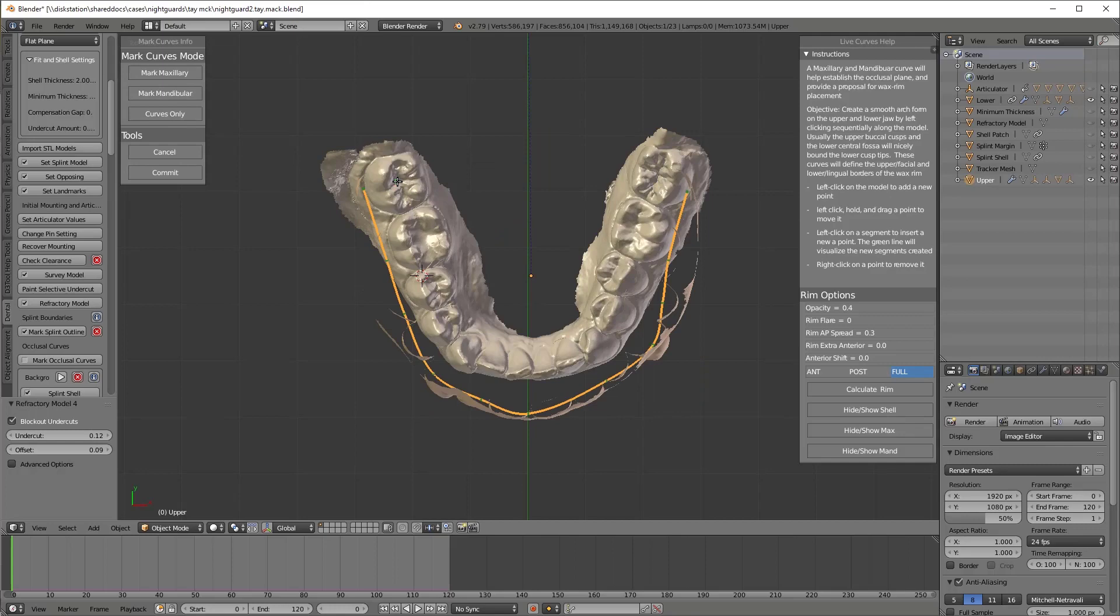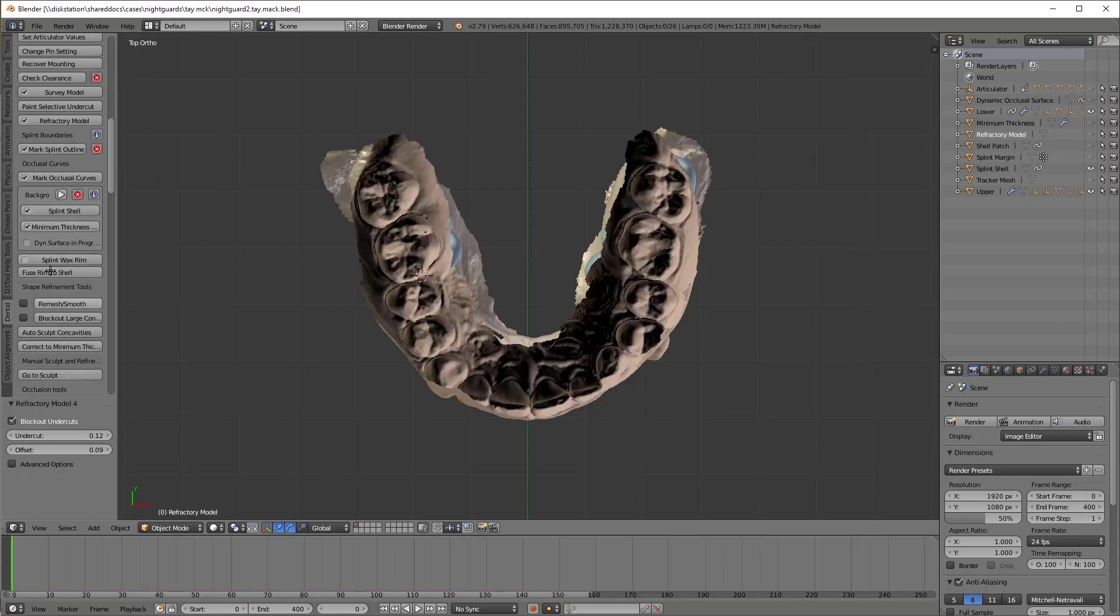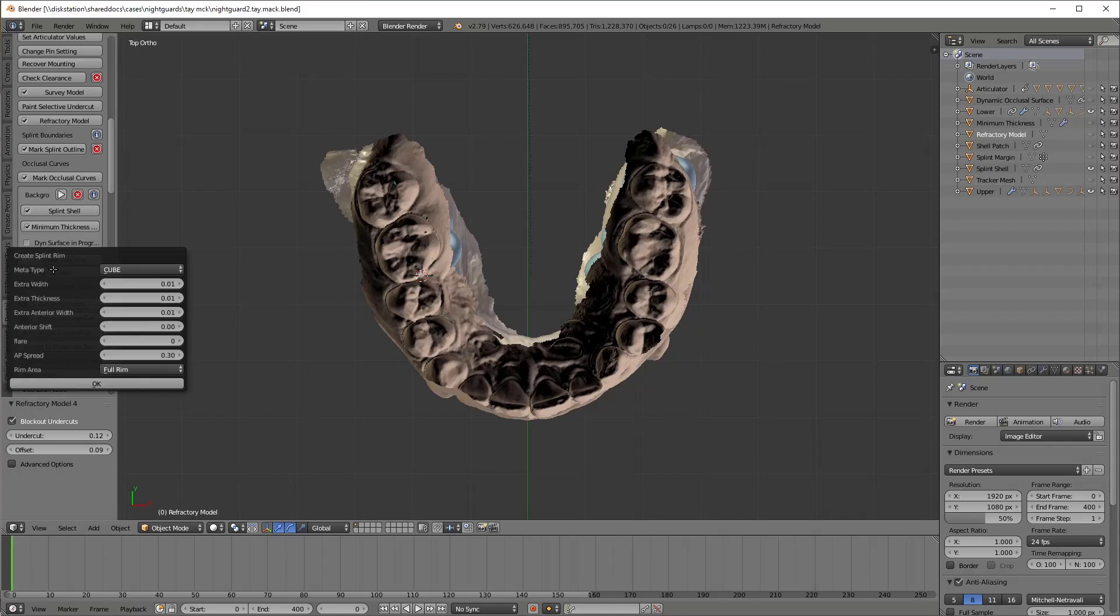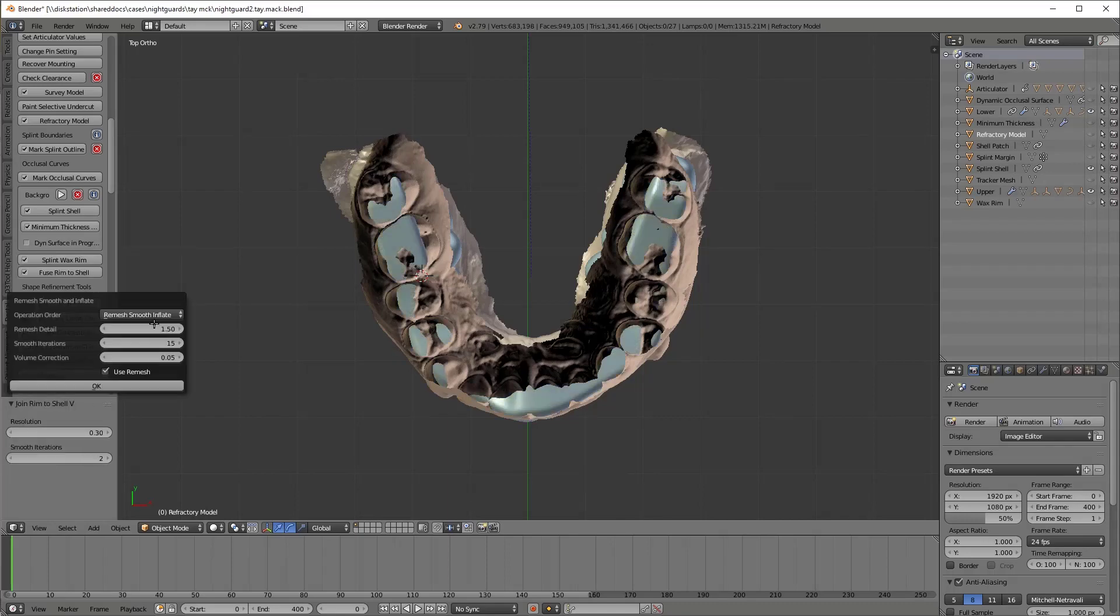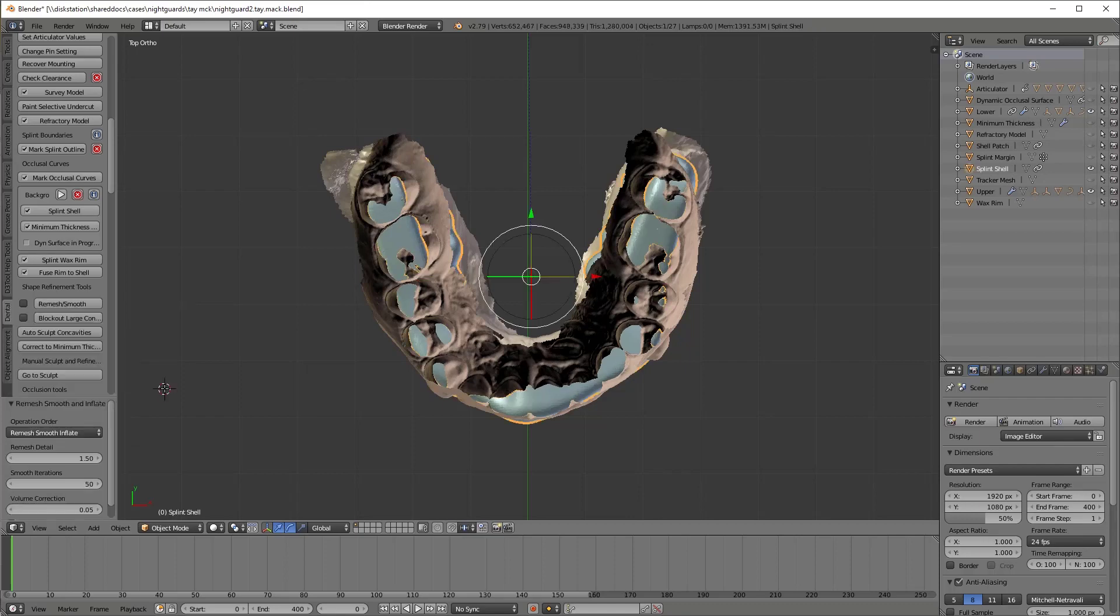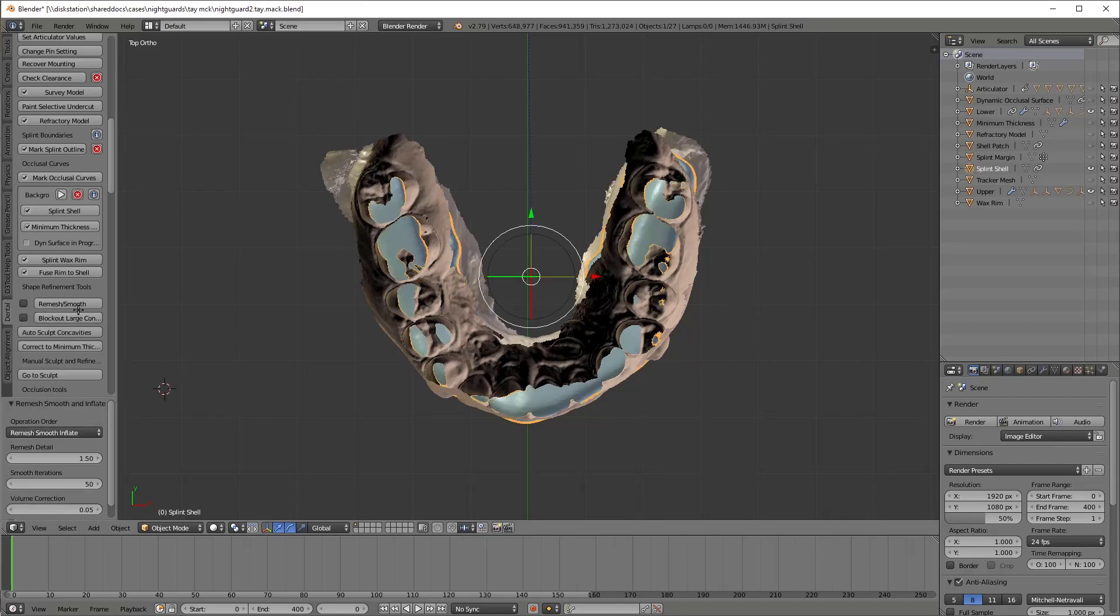Now we're defining the medial boundary of the flat plane with the mandibular curve. And so I'm going to click through the occlusal grooves. Basically we're trying to keep the working cusps supported by this flat plane and all excursive movements. I'm now going to start clicking a whole bunch of things by memory. I don't actually need to stop and look though you have that option. I'm just trying to get done quickly.